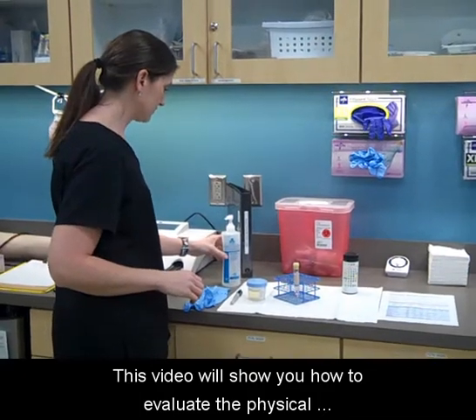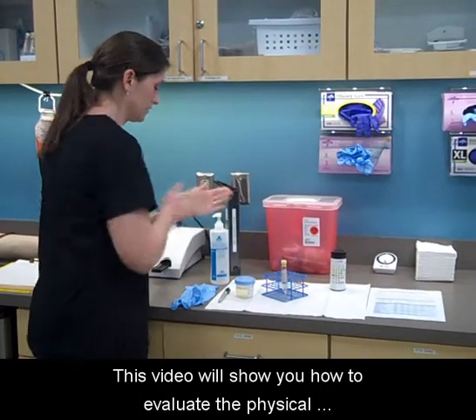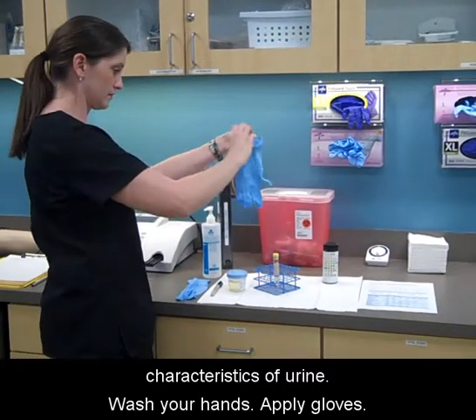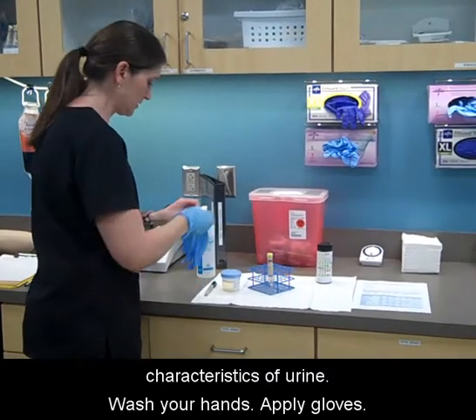This video will show you how to evaluate the physical characteristics of urine. Wash your hands and apply gloves.